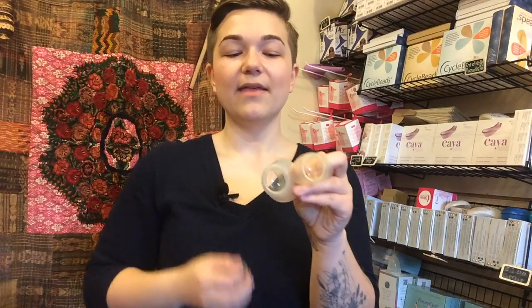The three sizes are 22 millimeter, 26 millimeter, and 30 millimeter diameter. The reason there are three different sizes relates to different people's reproductive histories. The first size — 22 millimeters — is for anybody who hasn't given a vaginal birth and hasn't even been pregnant yet; so this is for someone with no prior history of pregnancy whatsoever.